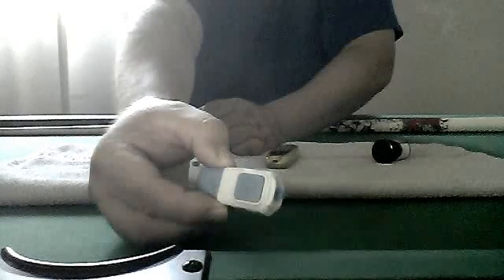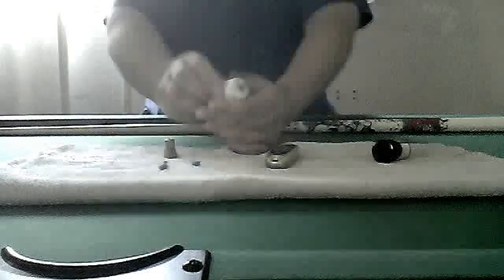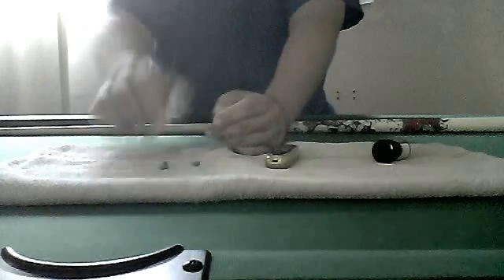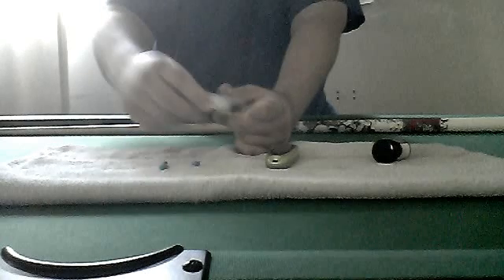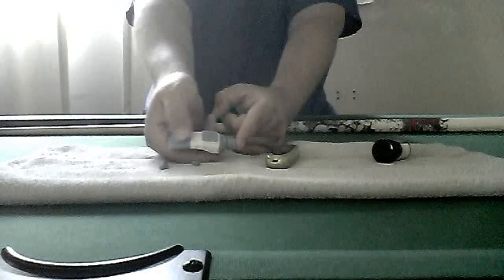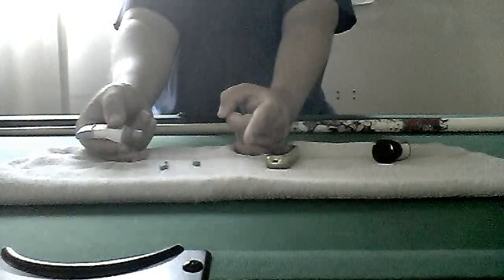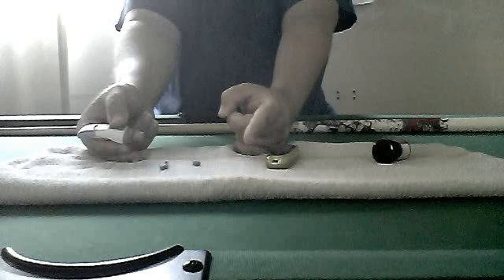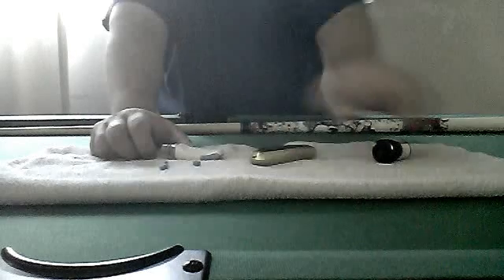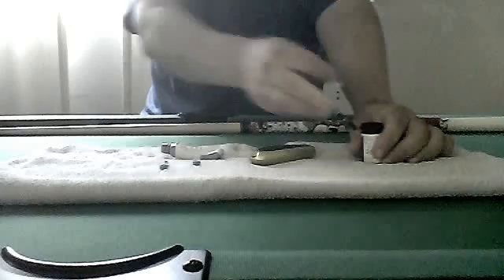You can see it — there it is, a little needle. Alright, you put this thing back on, and then you're going to put it on your finger like this and push the button right here. The needle is going to come out and poke you, and some blood is going to come out. Before you do that, there are these things called strips.